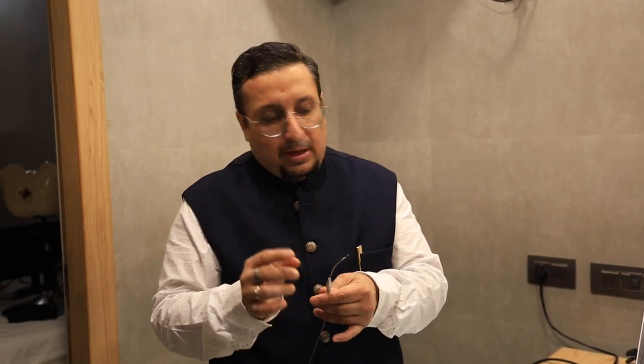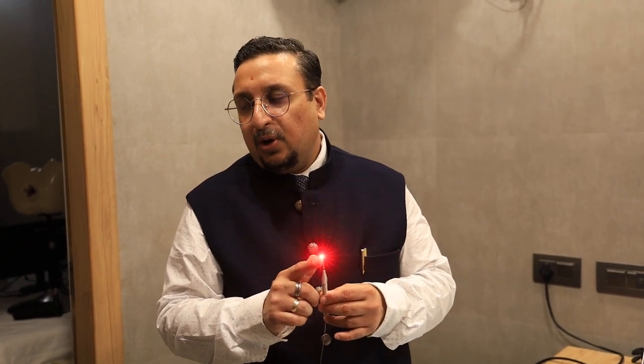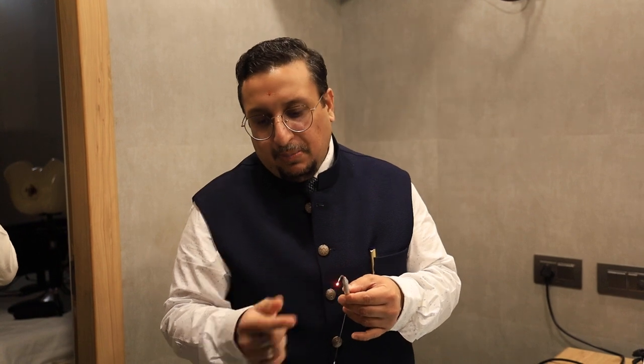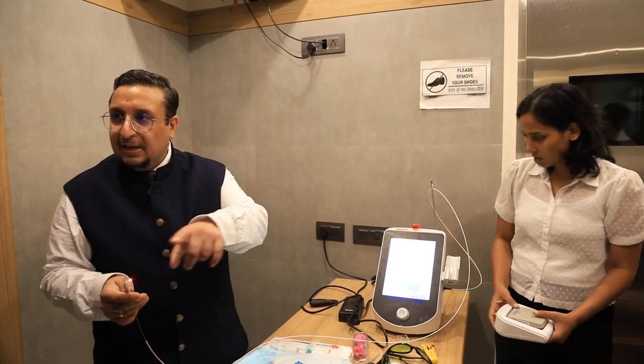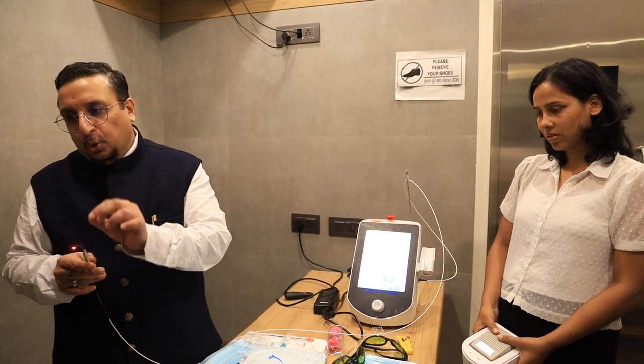Third thing: you have to feel the light is on. The energy is not on — this is the concept I told you. This laser light is called the aiming beam. This is basically the aiming beam; this is not the laser light, this is only the aiming beam. When she will press the energy button, then the energy will be delivered. Aiming beam is used because laser has no visible light.